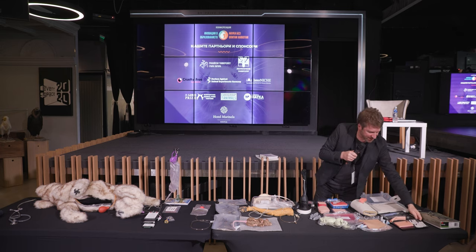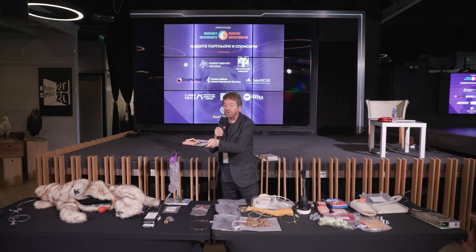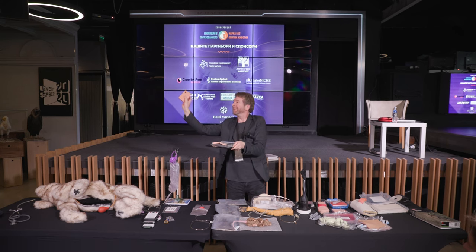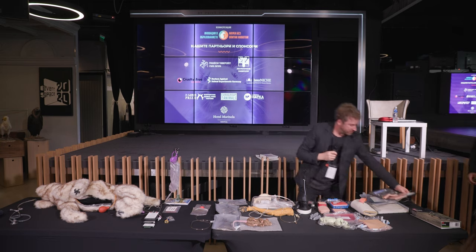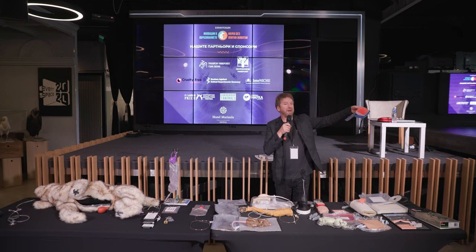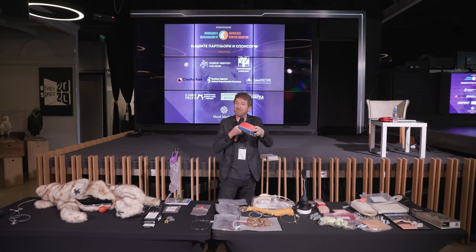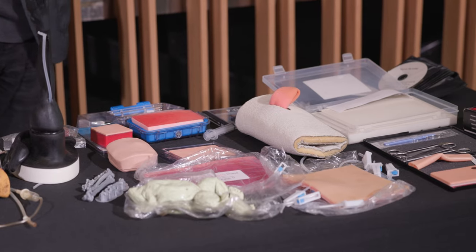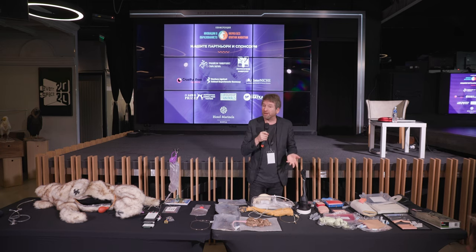You can buy full sets in order for every student to have a set for their dissection kit, and there's also a pathology on one of these. You can get different pathologies on the models as well. Then there are injection pads — this is a two-layer pad for intramuscular and subcutaneous injections. You can practice and practice again. It's the importance of that exposure and practicing that we need to recognize — sufficient fidelity with a simple model because you're talking about simple basic skills. Getting those right at the beginning is really important because then you're set up for the more complex procedures and you haven't been learning bad technique.